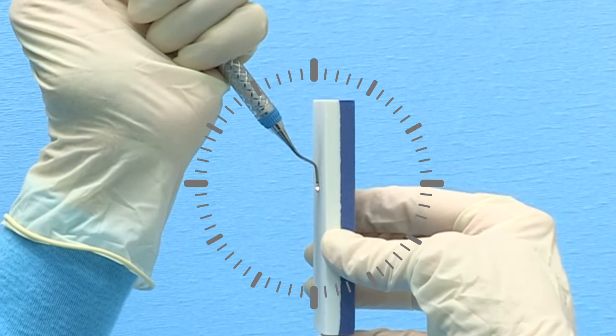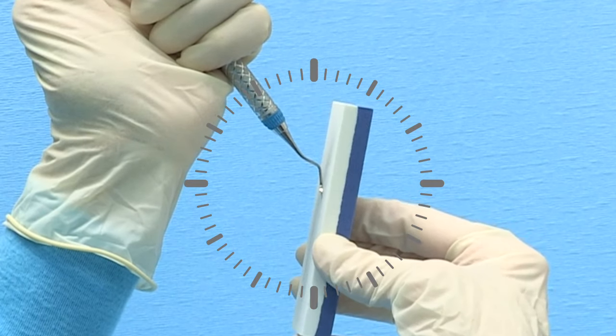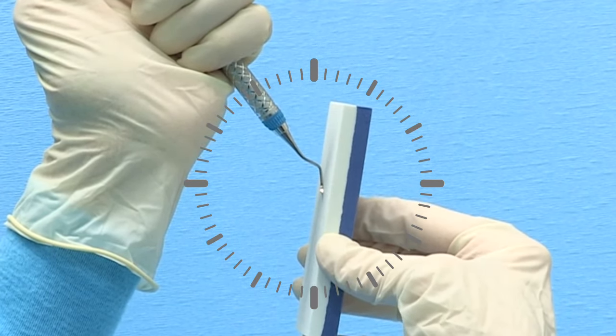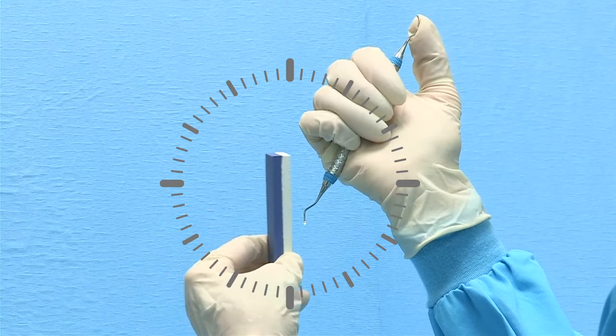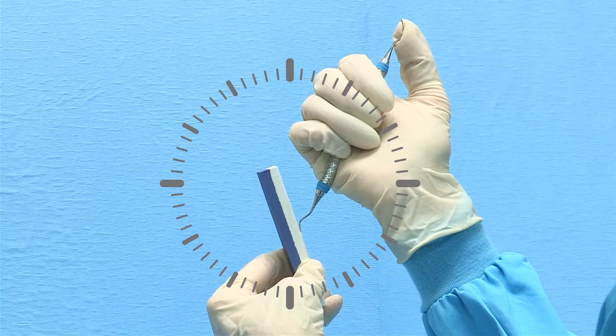Right-handed clinicians should tilt the top of the stone slightly away from the handle to approximately 3 minutes past 12 o'clock. Left-handed clinicians will tilt the top of the stone to approximately 3 minutes before 12 o'clock.